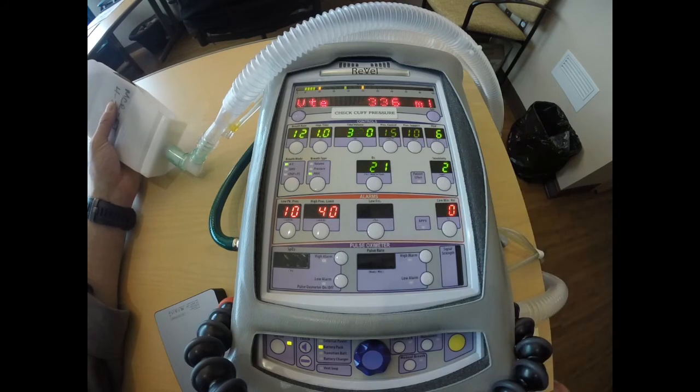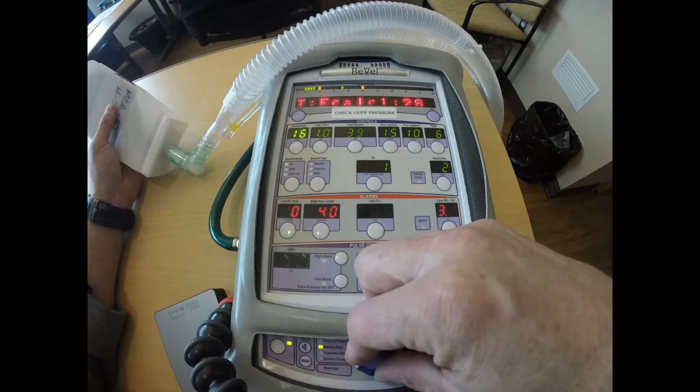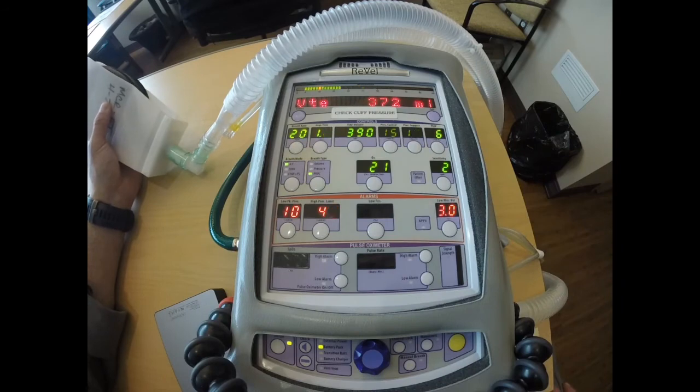Now I know that because I decreased my tidal volume, I also decreased my minute ventilation. And I also know that minute ventilation and end-tidal CO2 are inversely related to each other. So more than likely in this case, my end-tidal CO2 is increased, and my PaCO2 is also increased. And so I probably need to increase my minute ventilation by adjusting my respiratory rate. I would also think about getting an arterial blood gas after 20 minutes on the ventilator and determine where I'm at.